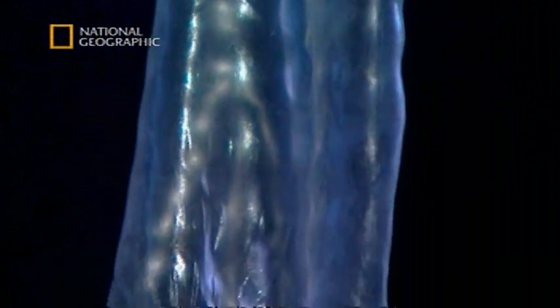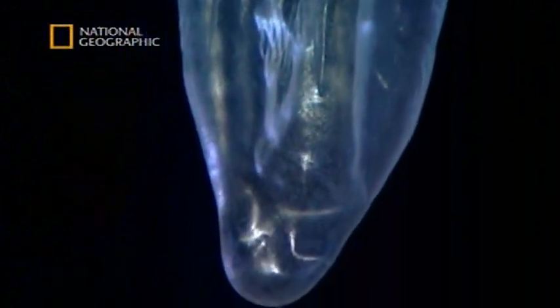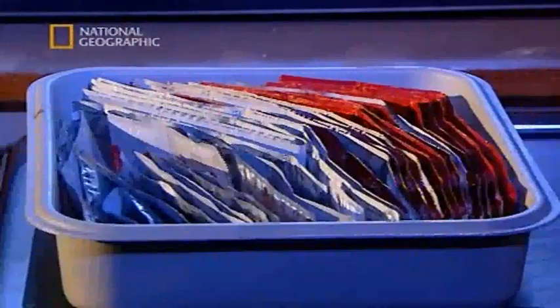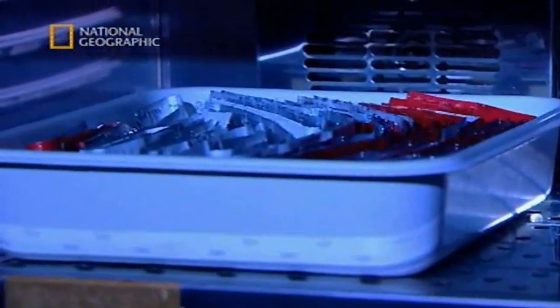The first test is to establish the durability of the rubber, and this is conducted while the condoms are still in their foil wrappers. The condoms are placed in an oven at 70 degrees Celsius for a period of seven days, and that's designed to replicate the shelf life of the condoms. And the normal shelf life of a condom? About six years.